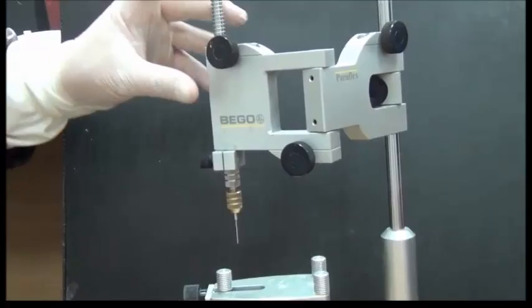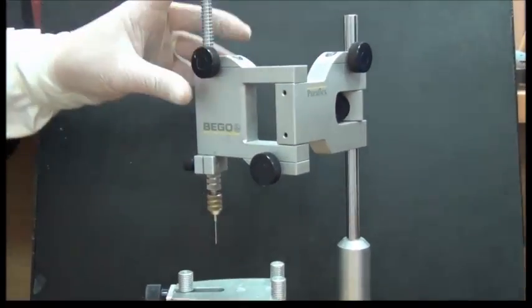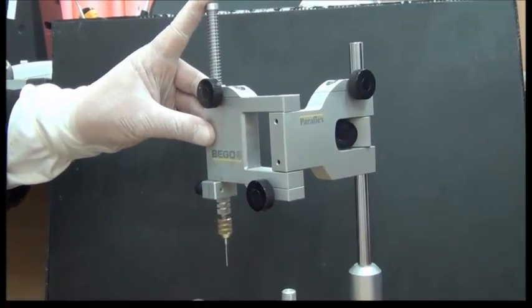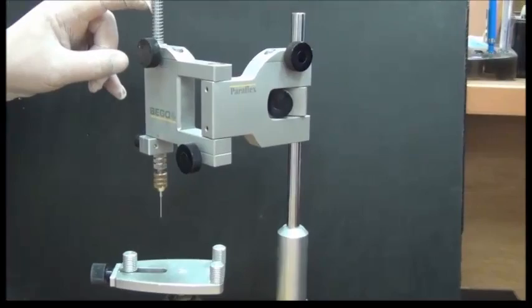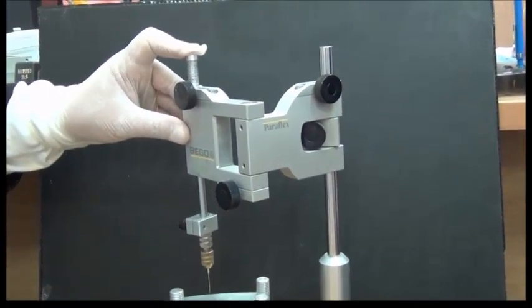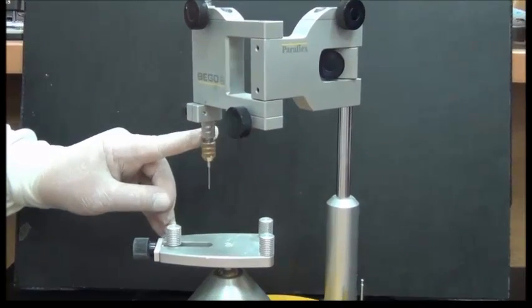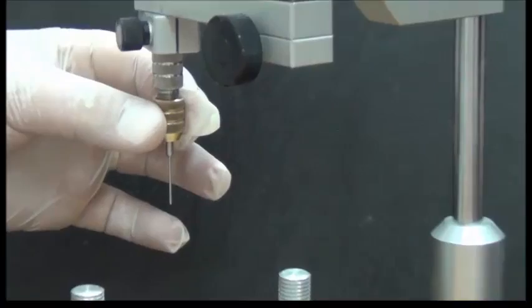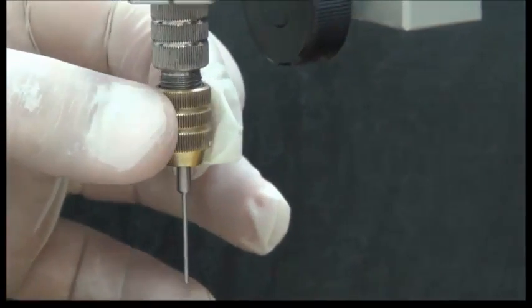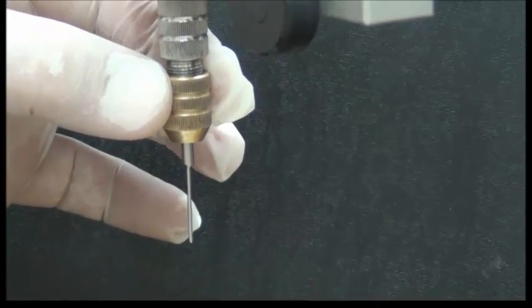And then we have the spindle, which is another vertical arm, but it has the ability to move. Its movement is also facilitated by the spring, where it puts it back into location, and it goes down into this part. This is the tool holder, and we use it to attach our instruments that we will be utilizing during the surveying.